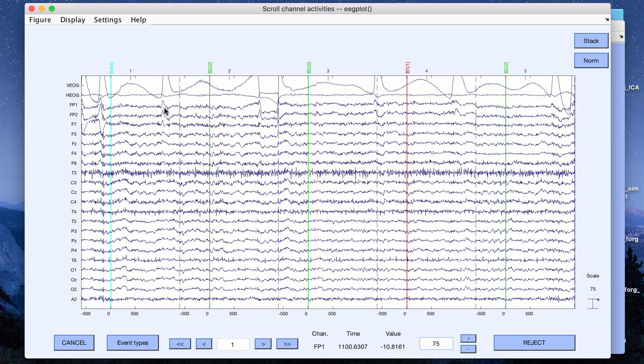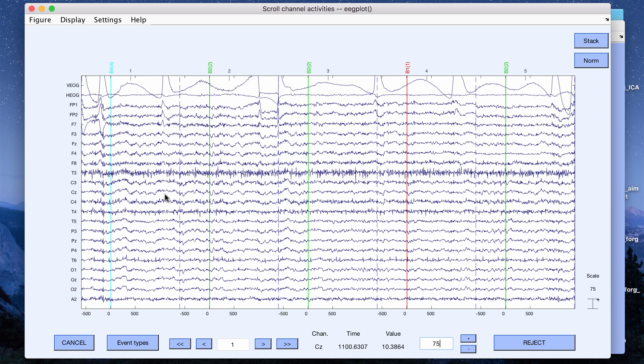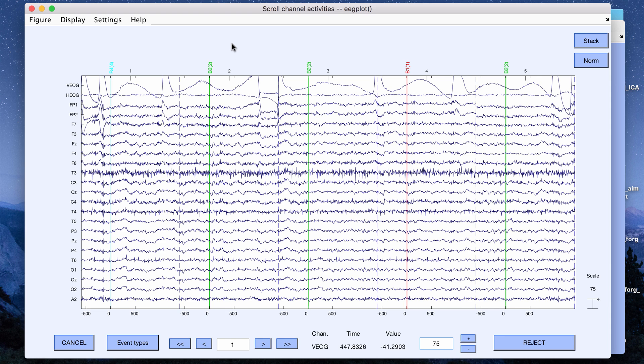As you can see here, especially for the frontal electrodes, when there's a blink artifact you still see the artifact in especially the frontal electrodes and the other EEG channels and the same thing with saccades as well. That's one thing that we're, or two things that we're going to try to remove with the ICA decomposition.